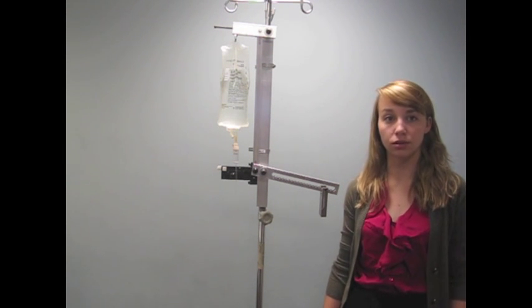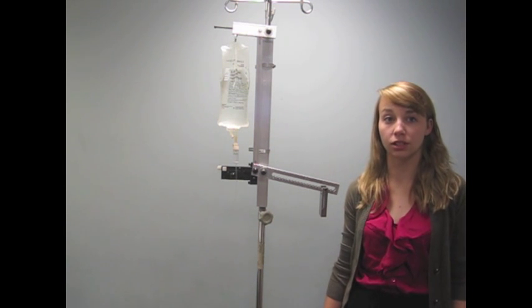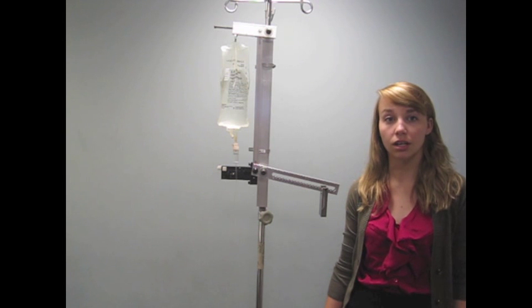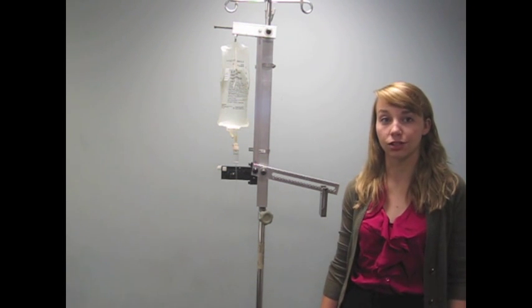IV regulation technologies used in developed nations, such as infusion pumps and disposable syringes, are inadequate for use in these low-resource clinics, which are in need of a more durable and sustainable method of volume regulation.